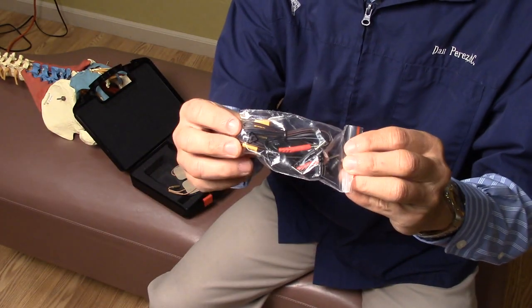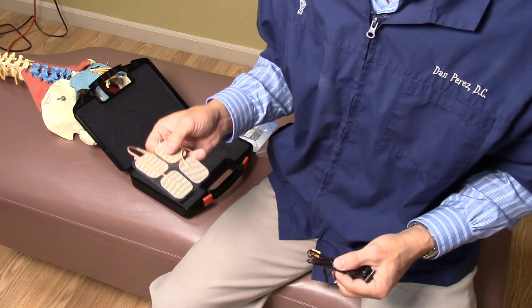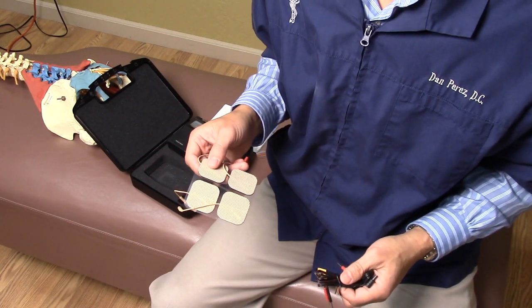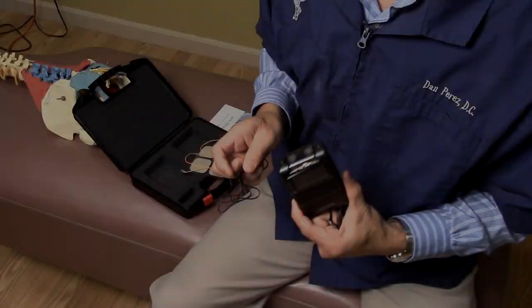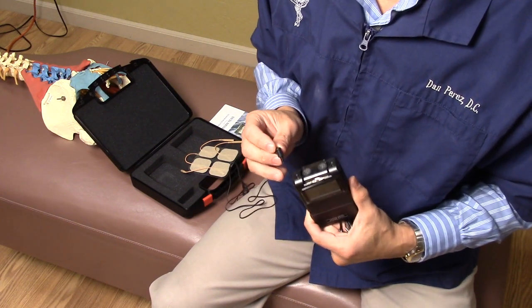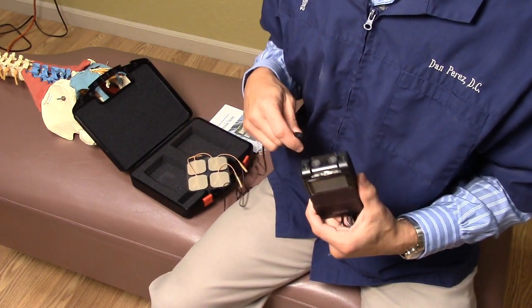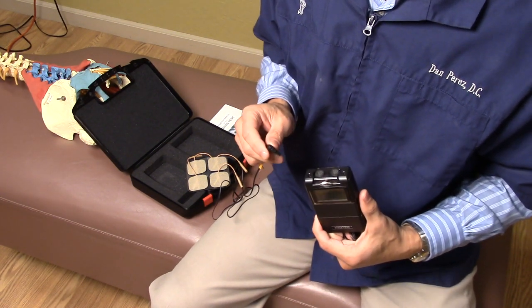These are the cables for the electrodes. You could use four electrodes around one area, or you could use two for one area and two for another — for example, two in your lower back and two on the right shoulder if you have pain there. It's very important to not turn on the TENS unit until everything is set, because if the power is on and you touch the electrodes with your fingers, you will get a shock. Wait until the electrodes are applied, then turn it on.